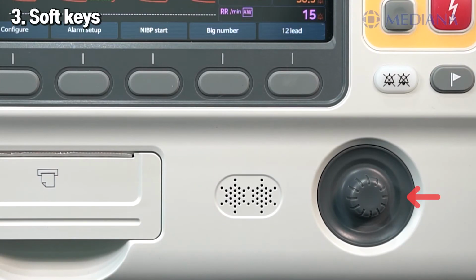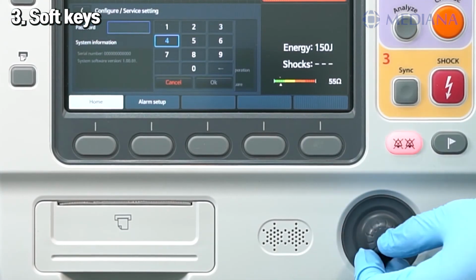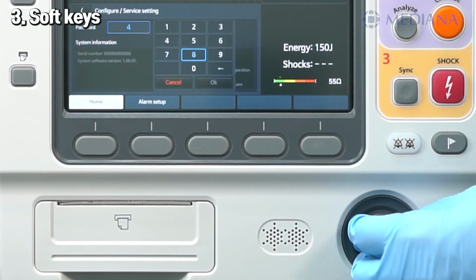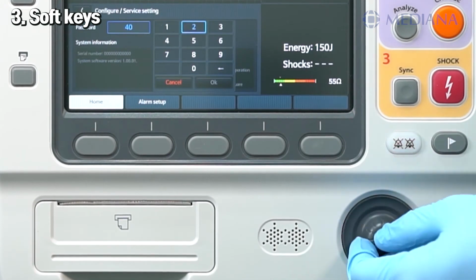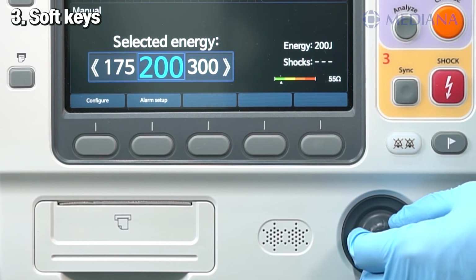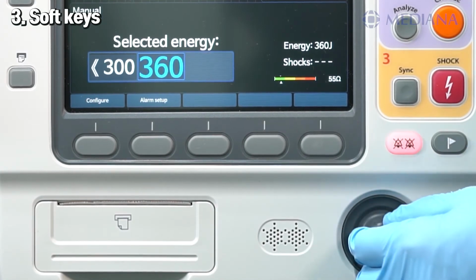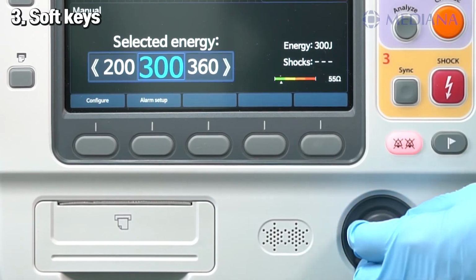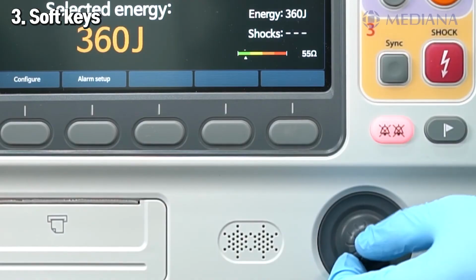This is the multifunction knob. Press it and it displays the chosen category on the screen. You can scroll the knob clockwise or counterclockwise to select a variety of parameters shown on the screen. Press it again to select the required item. If you have a numeric selection window open, turning the knob clockwise increases the numerical value. By turning it the other way around, it decreases the value. Press it again to select that value.